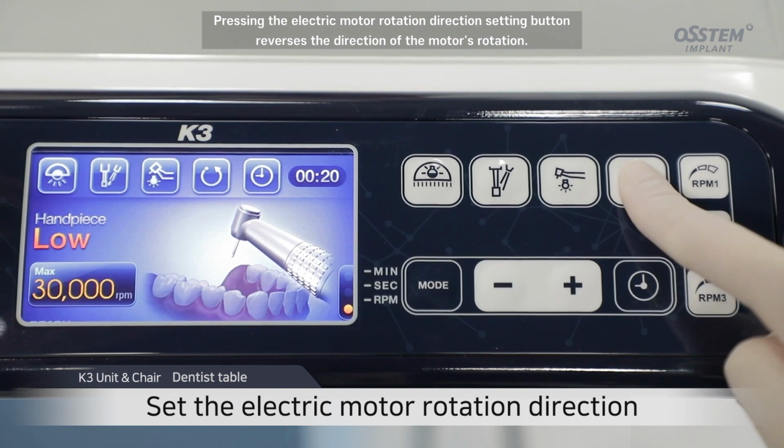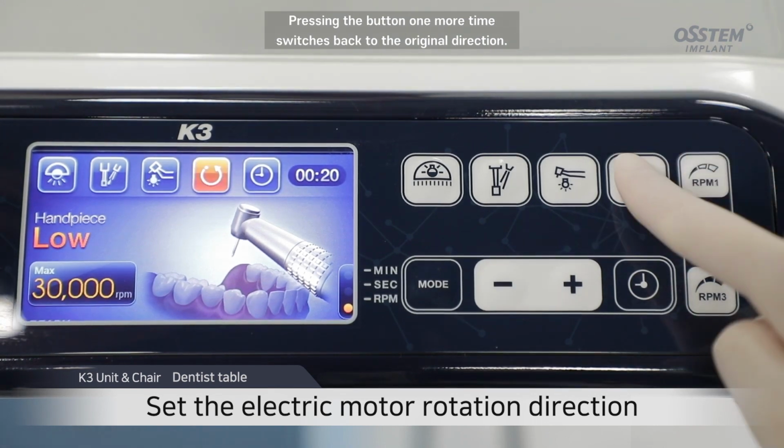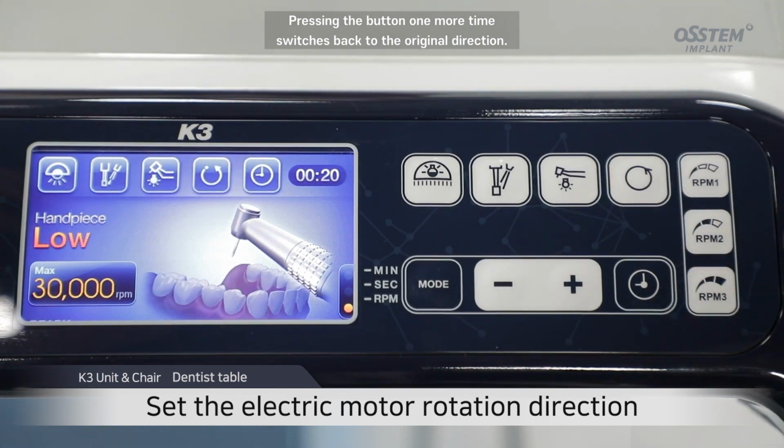Pressing the electric motor rotation direction setting button reverses the direction of the motor's rotation. Pressing the button one more time switches back to the original direction.